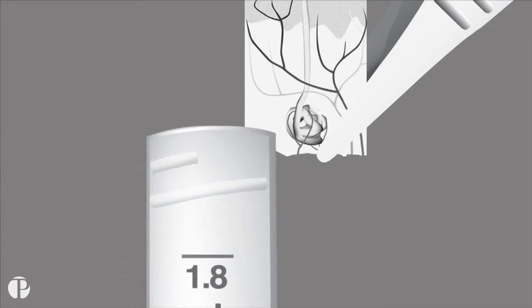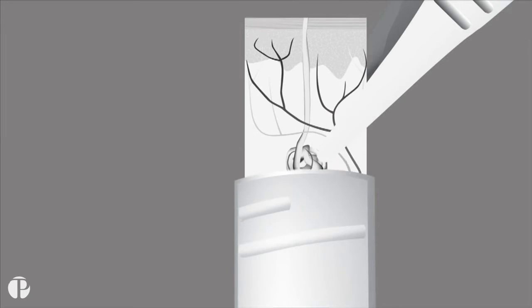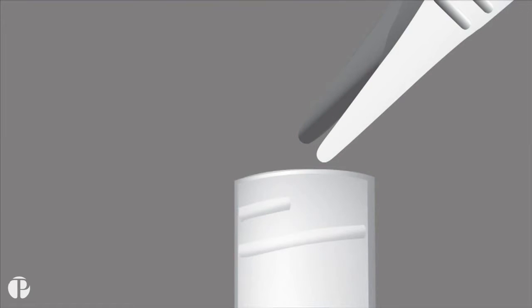When placing the sample in the fixative vial, ensure that the sample is floating in the fixative and not stuck to the screw threads at the top of the vial.